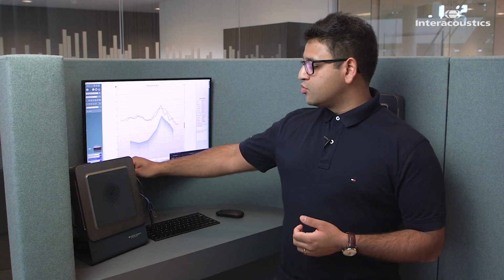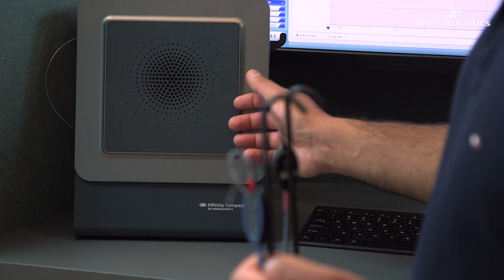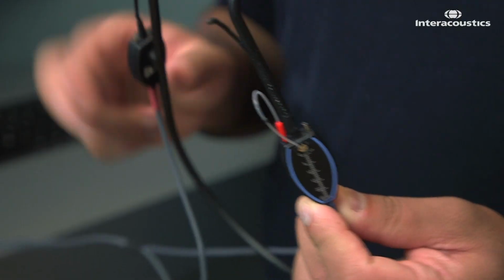We felt that this is a trend that we needed to capture in our hardware, both to make it more functional and also future-proof. And to do this, we've improved the microphones in our REM headset and also the speaker technology for the forward-facing REM speaker here. So we've got better microphones to measure up into higher frequencies and also better loudspeakers that allow us to stimulate into these higher frequencies as well. So let's see how this translates into our software.